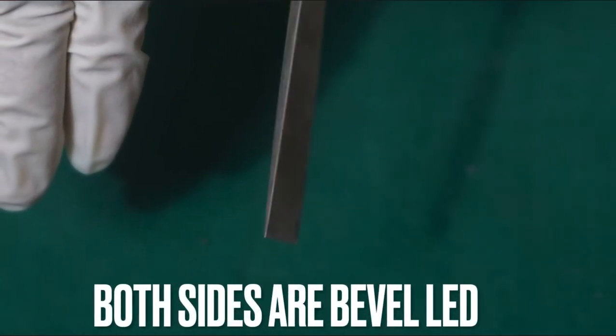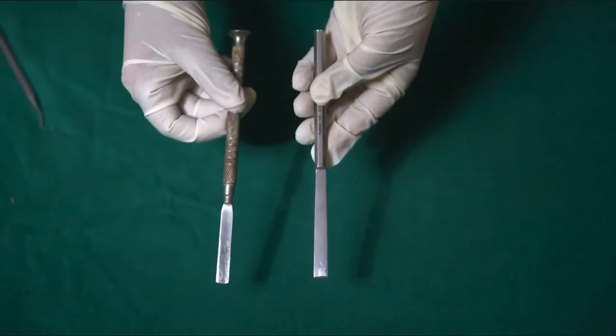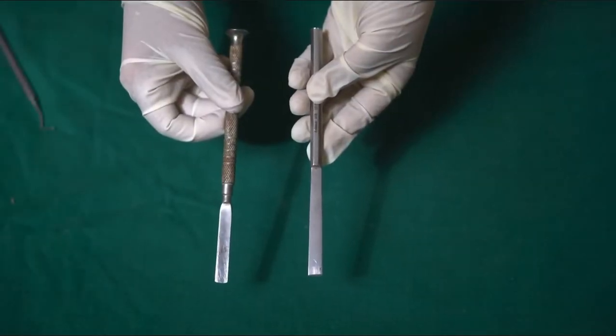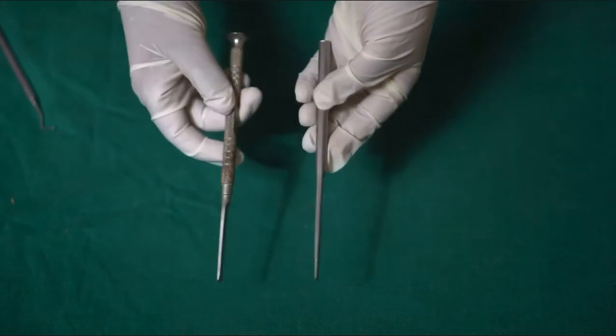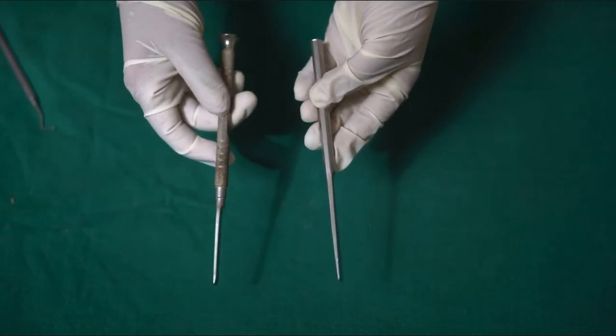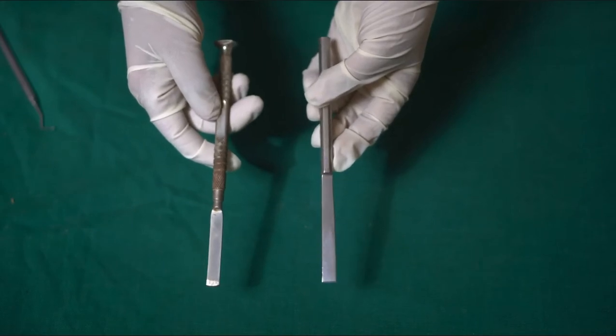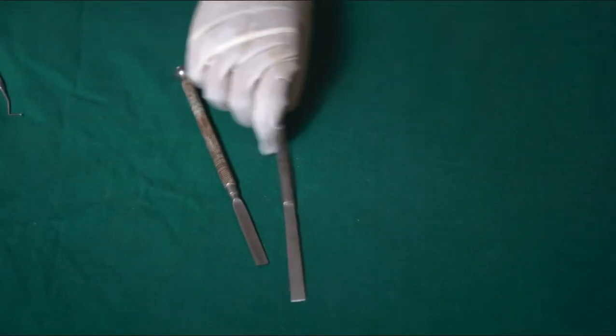Now coming to the osteotome: an osteotome is an instrument in which both sides are beveled. Both sides will be slanted, meaning neither side is at 90 degrees, as you can see in the video. So it is known as bi-beveled. Holding both instruments, you can see the chisel has a straight area on one side, but the osteotome does not have any straight area — it has beveling on both sides.